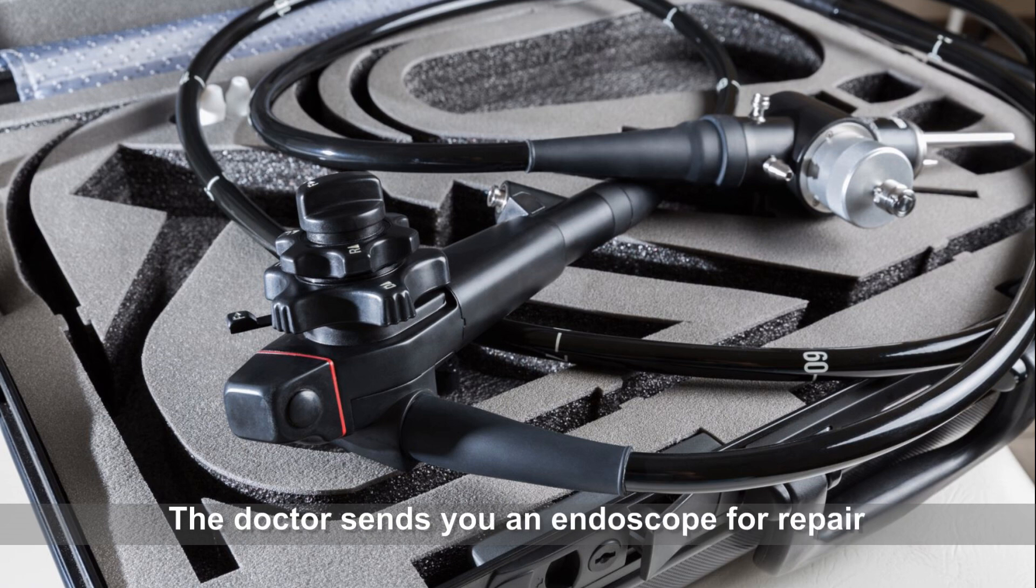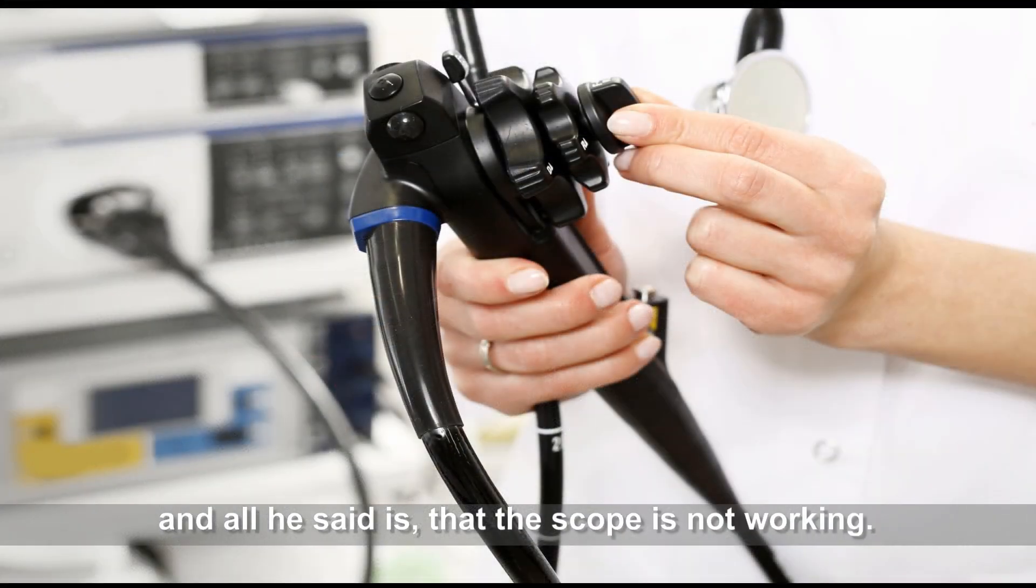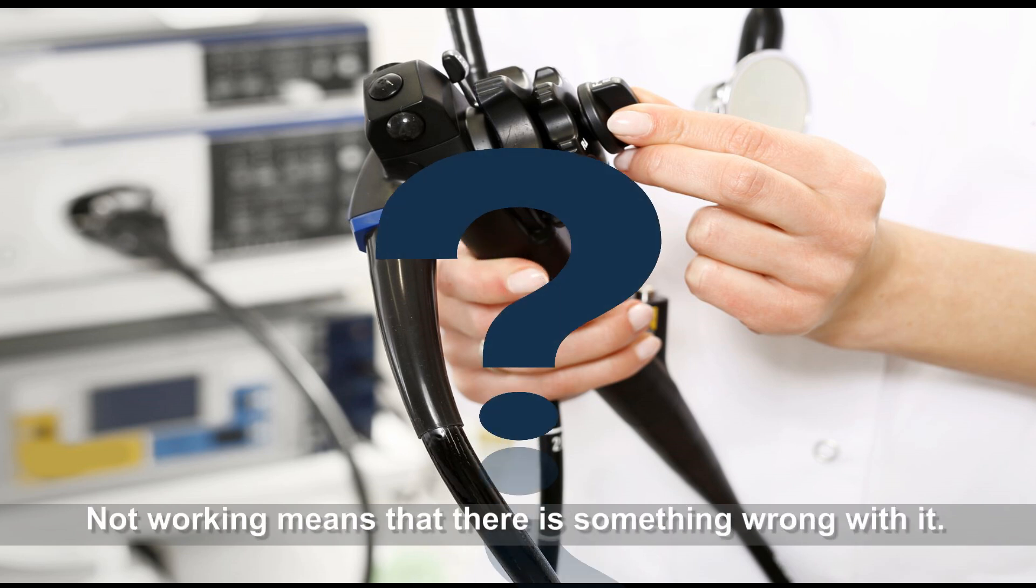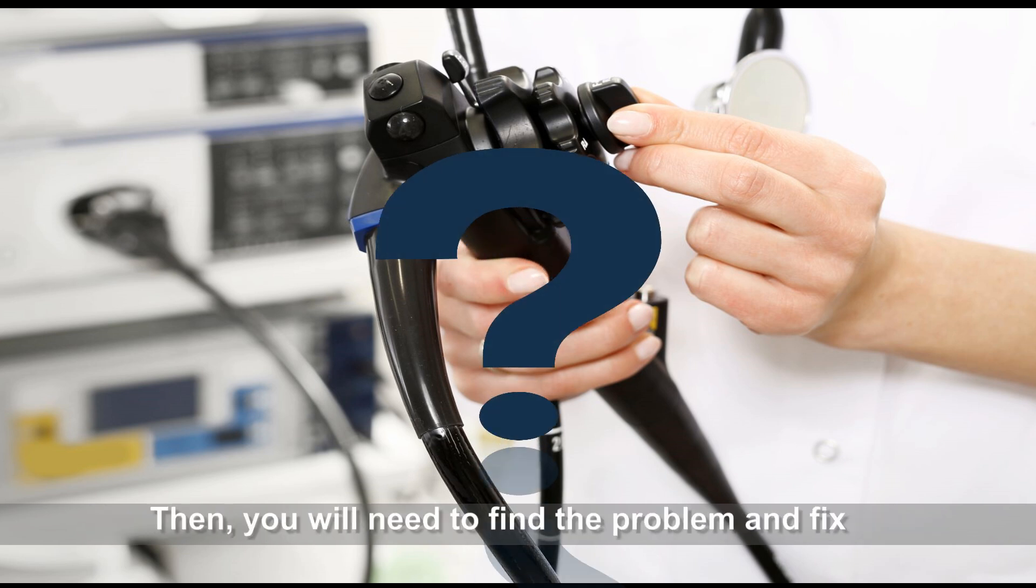The doctor sends you an endoscope for repair and all he says is that the scope's not working. Not working means that there's something wrong with it. Then you will need to find the problem and fix it.